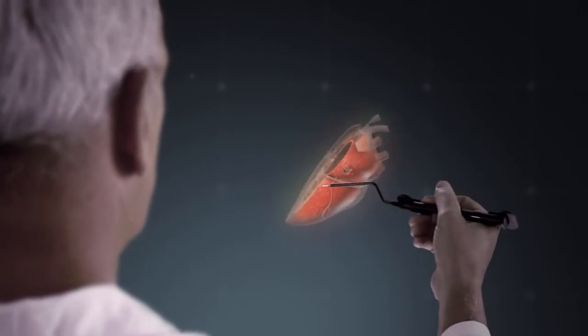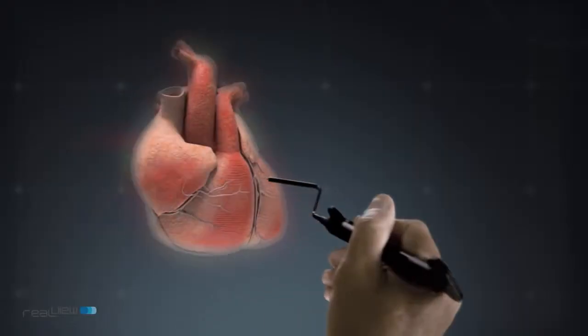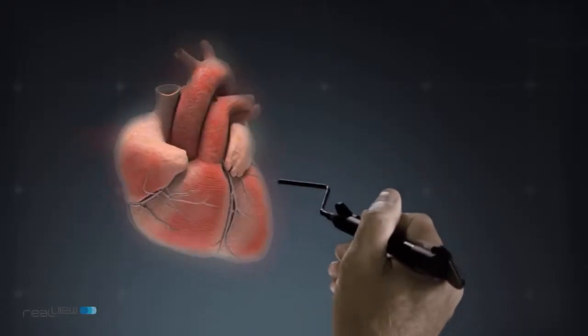For the first time in my career, I had the patient's virtual heart literally beating in the palm of my hand. I could freely crop the hologram to define a desired plane, giving me comprehensive understanding of the spatial anatomy. I was able to view it from any angle, rotate it, zoom and move it about as I wished.